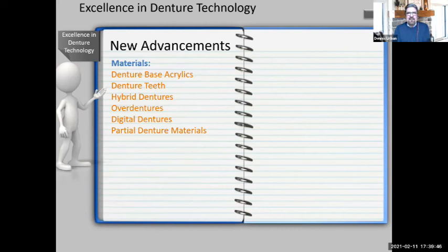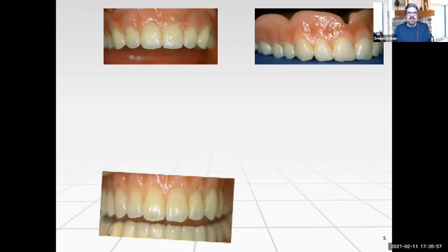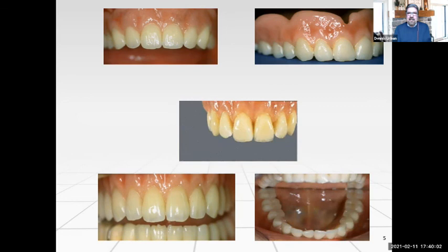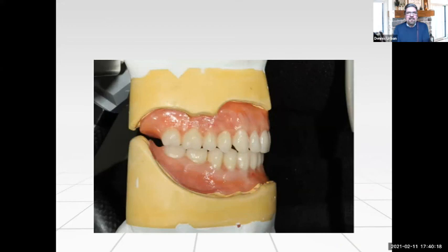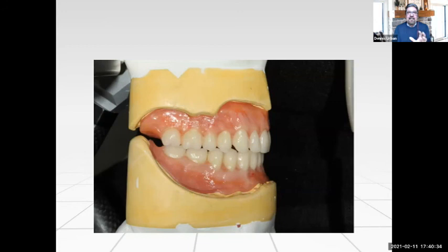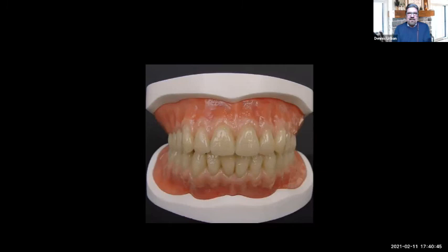Some of the photos on screen show dentures I've done with denture base staining characterization to mimic the natural gingiva of a patient. If you have a patient in the chair and the acrylic isn't matching the patient's natural gingiva, we can do that. We can characterize the wax-up to mimic the patient's natural gingiva, take a digital photo, and transfer that technique over to denture base staining. This is a full upper and lower denture with denture base stain — a physio setup with the teeth — and look how nice and aesthetic that looks.